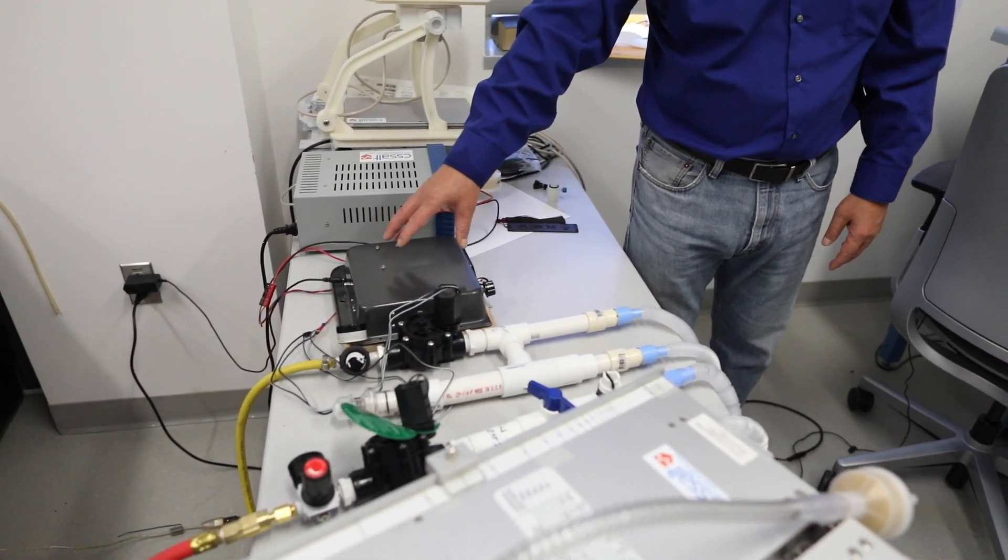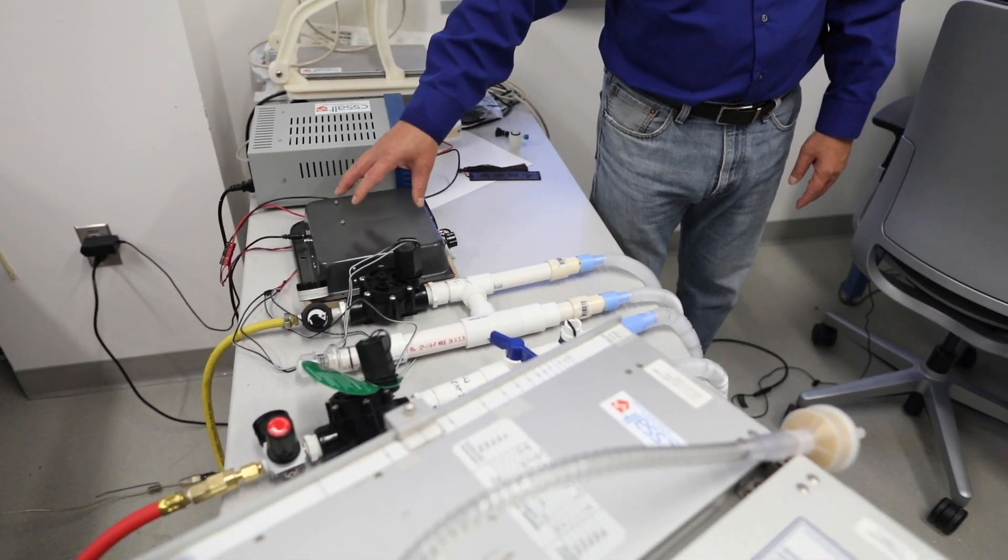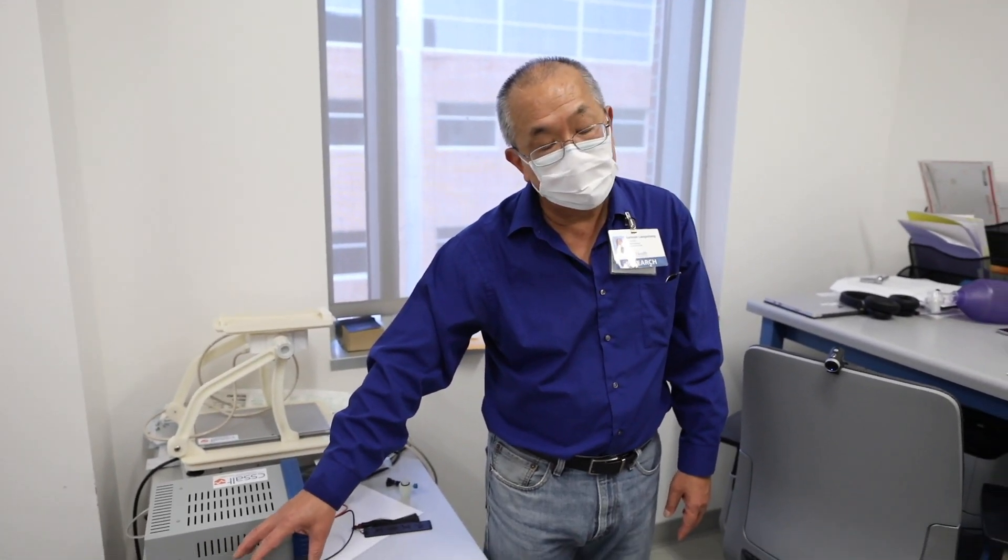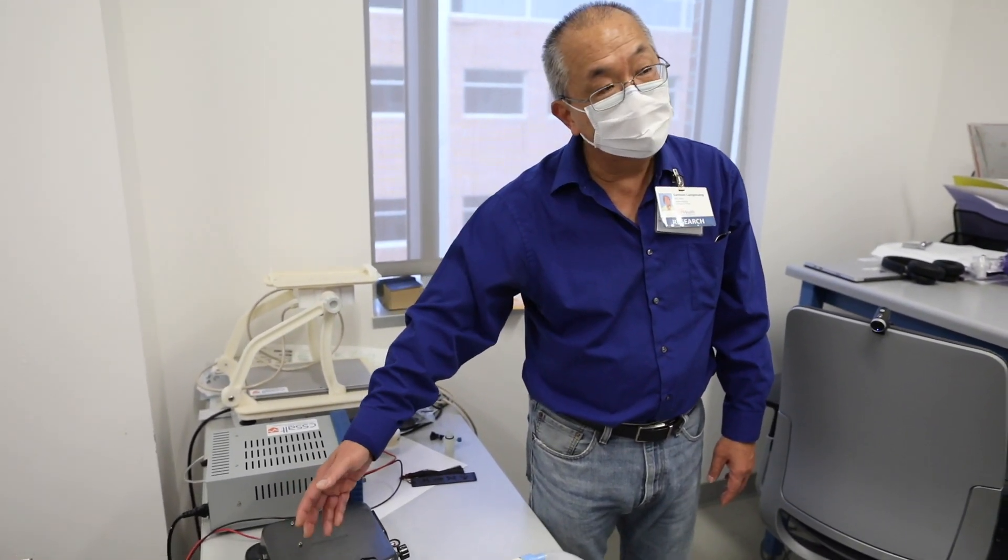A group of software developers in Ottawa, Canada, India, and Gainesville are developing software for it. So this is the brains of the ventilator, but it's only like $20-$25.